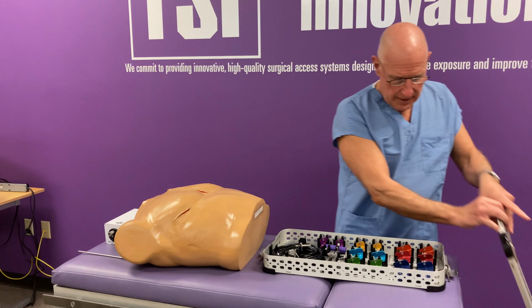This is the retractor body. So we're going to select the proper blades for the patient, and to use the pivot function, we should use blades which extend past the rib. So in the orientation, we're going to put the blade that says upper on the side of the retractor towards the head, and the lower one, side of the retractor towards the feet.